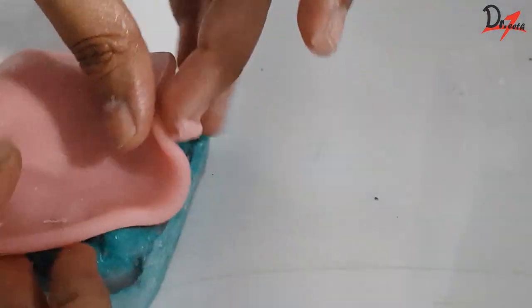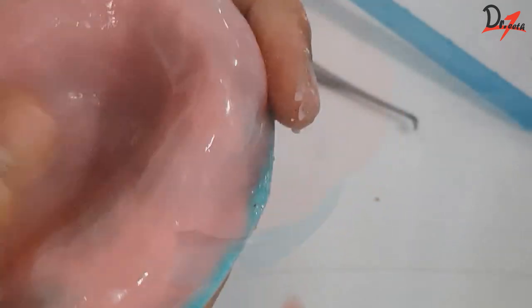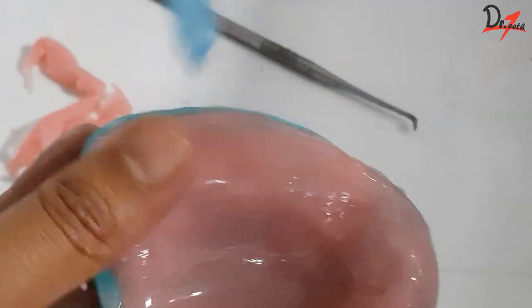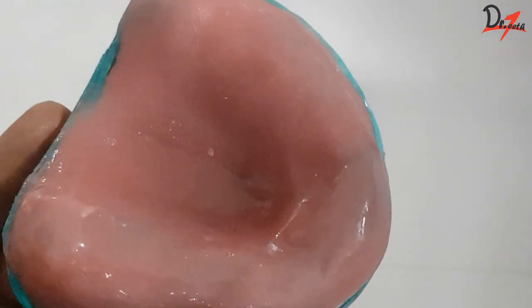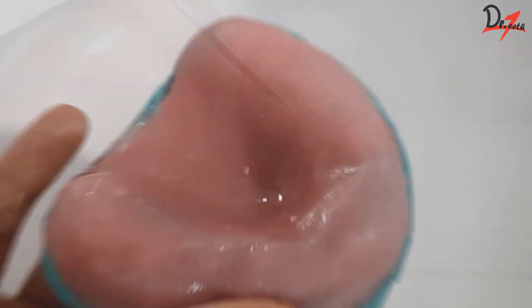As you can see here, we have got our acrylic chapati. Then I will adapt it gently onto the cast and press it. Make sure you press very gently, because pressing harder can remove excess material and the record base can get very thin there. But if that happens, you can always add more material on top to rectify the mistake.